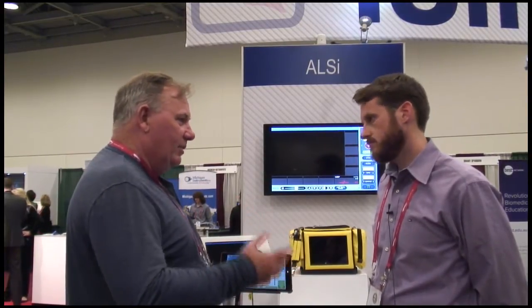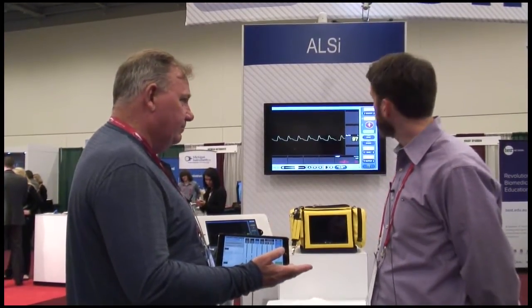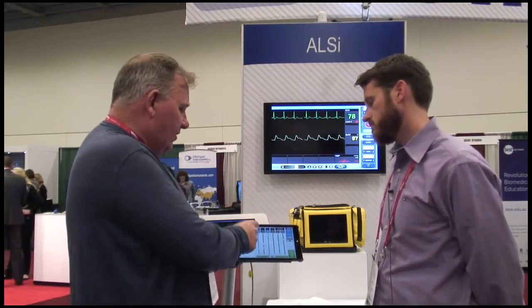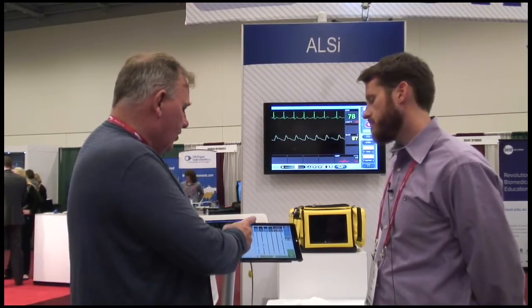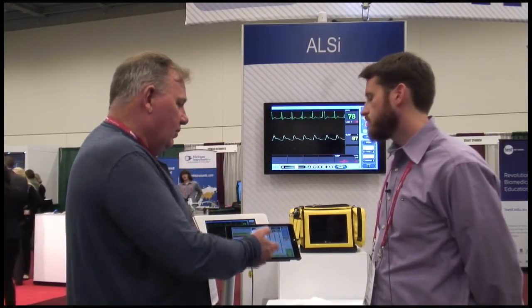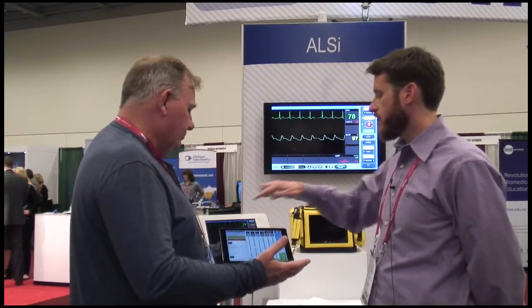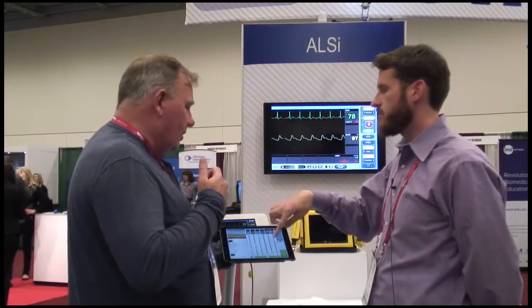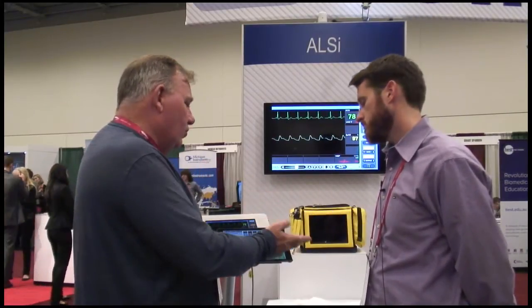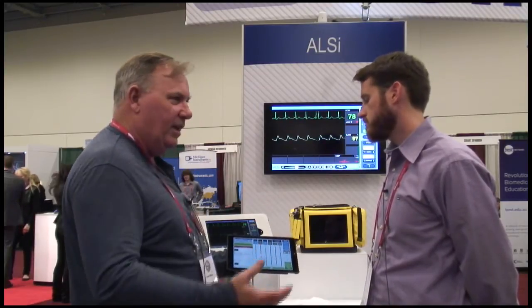The principles are the same — everything's touchscreen, instructor-led. In this case, I'm a simulator patient with leads on and a SATs probe. We still touch things to make things happen. What we've done is made the scenarios run in line. You can now mark comments, but you can also press and hold to add those comments as 'did not do' or similar, making it a kind of topic hub. From there you can go further in-depth into what happened with that particular area. So that becomes an audit tool — you can view the log later and see exactly what you selected.